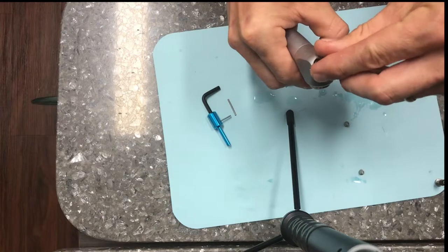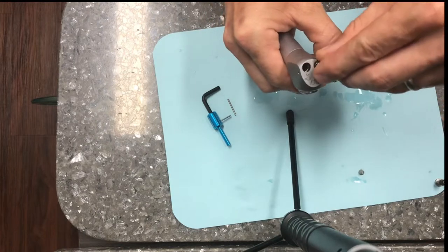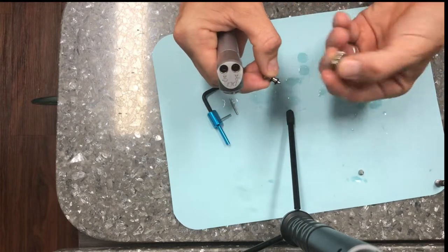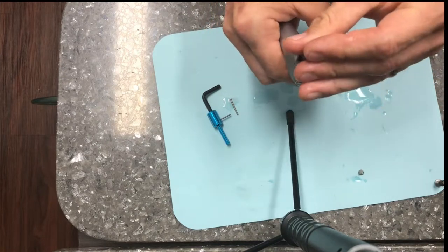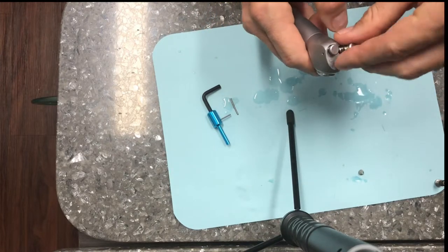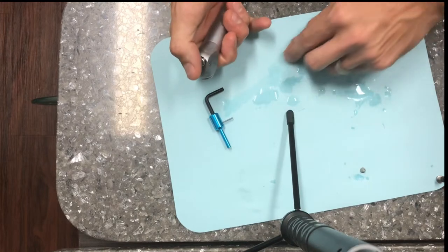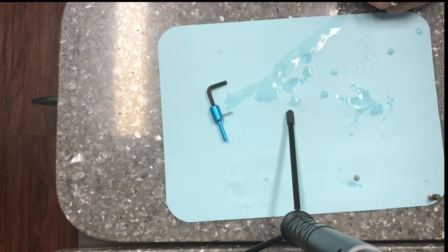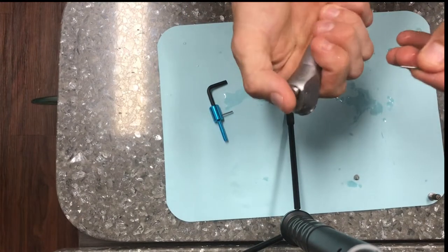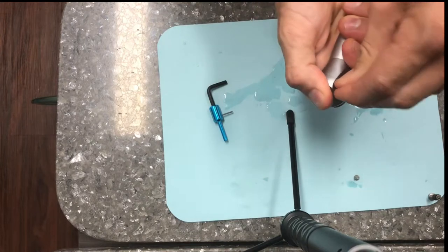It is simple as placing the conical springs back down inside of the ports. You want to place them fat side down. From there, you're just going to place the buttons back inside the ports, press down on the buttons ever so slightly, and use the retention pin and place it back inside the hole.